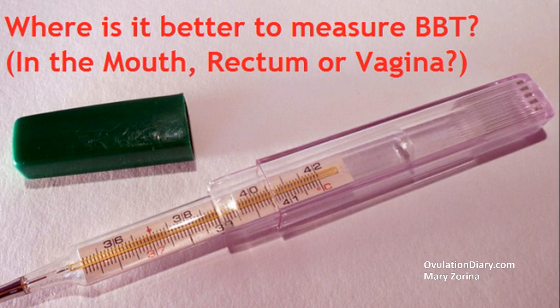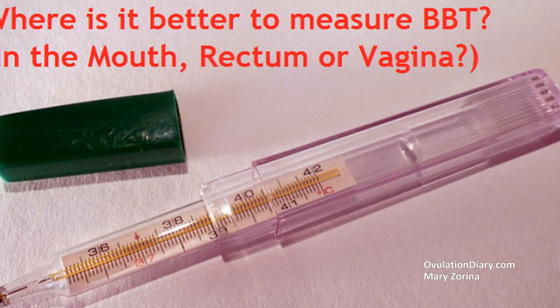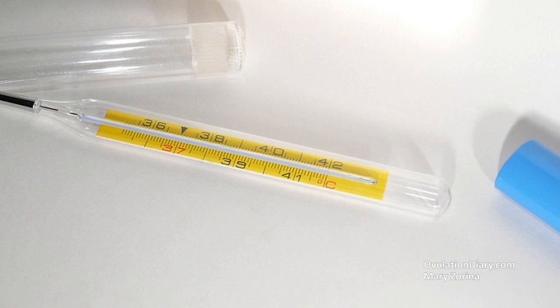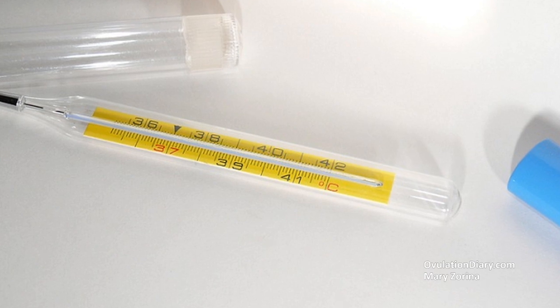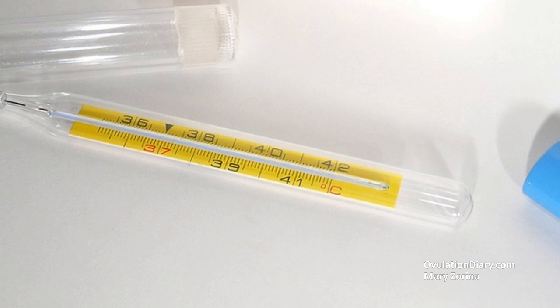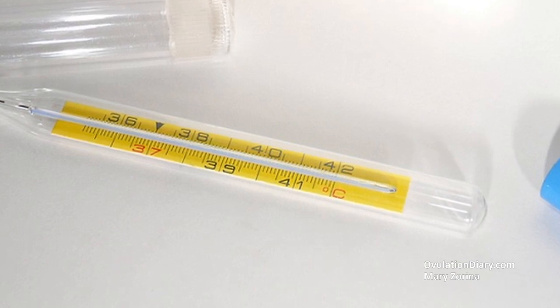For the oral method, the thermometer is placed under the tongue for about eight minutes, or with a digital thermometer, until the sound signal. With the rectal and vaginal methods, the thermometer is immersed two to four centimeters deep for about five minutes. The most accurate methods are rectal and vaginal, while the most popular is oral.